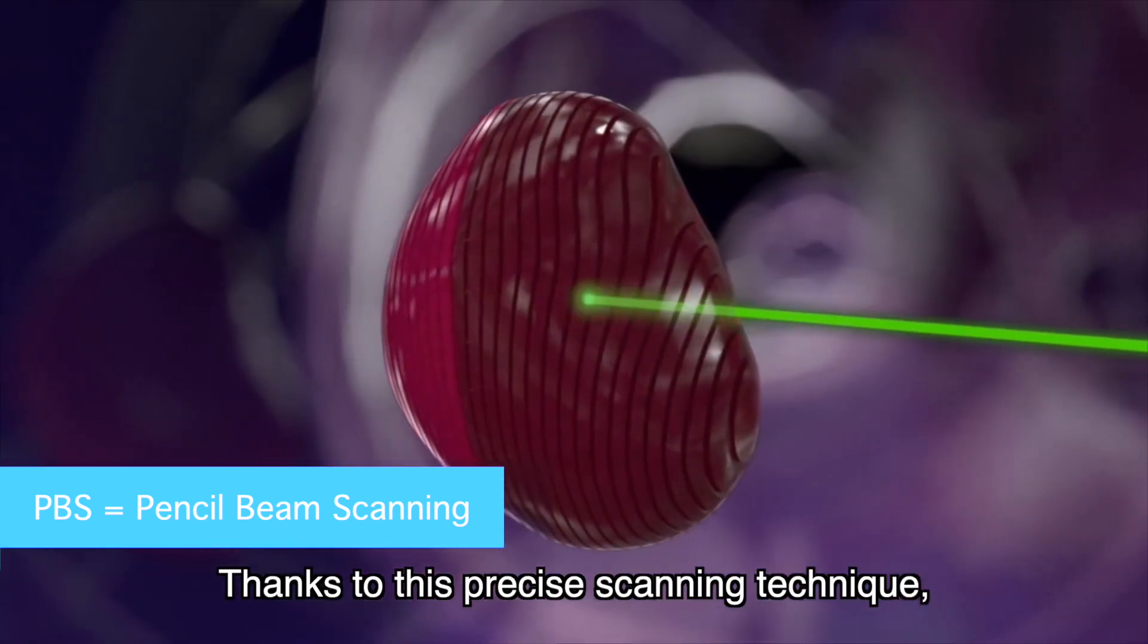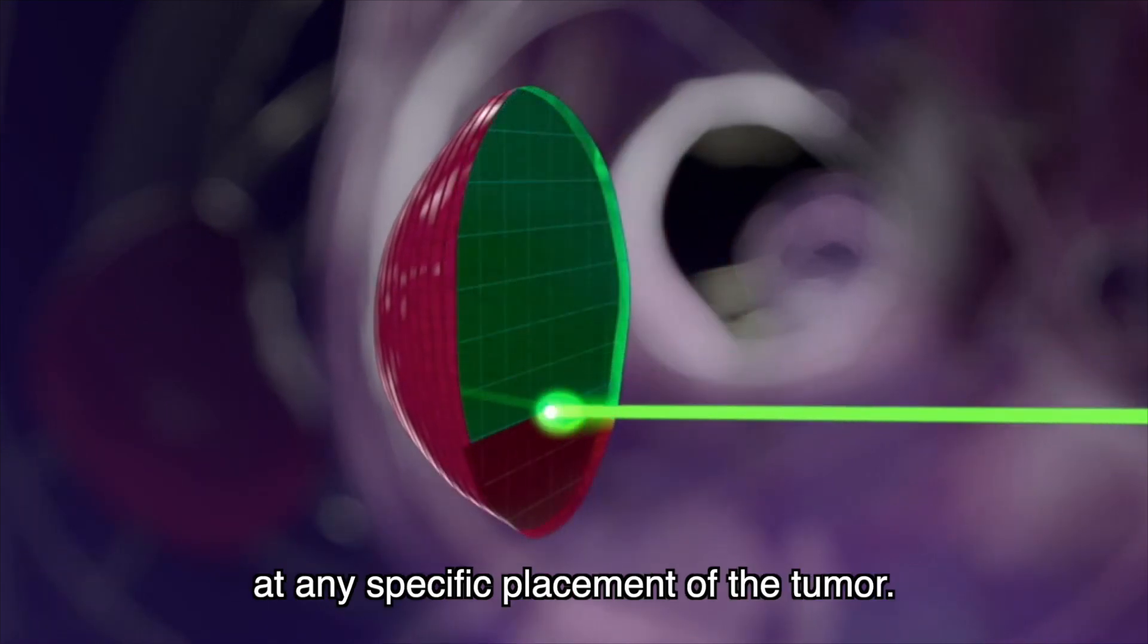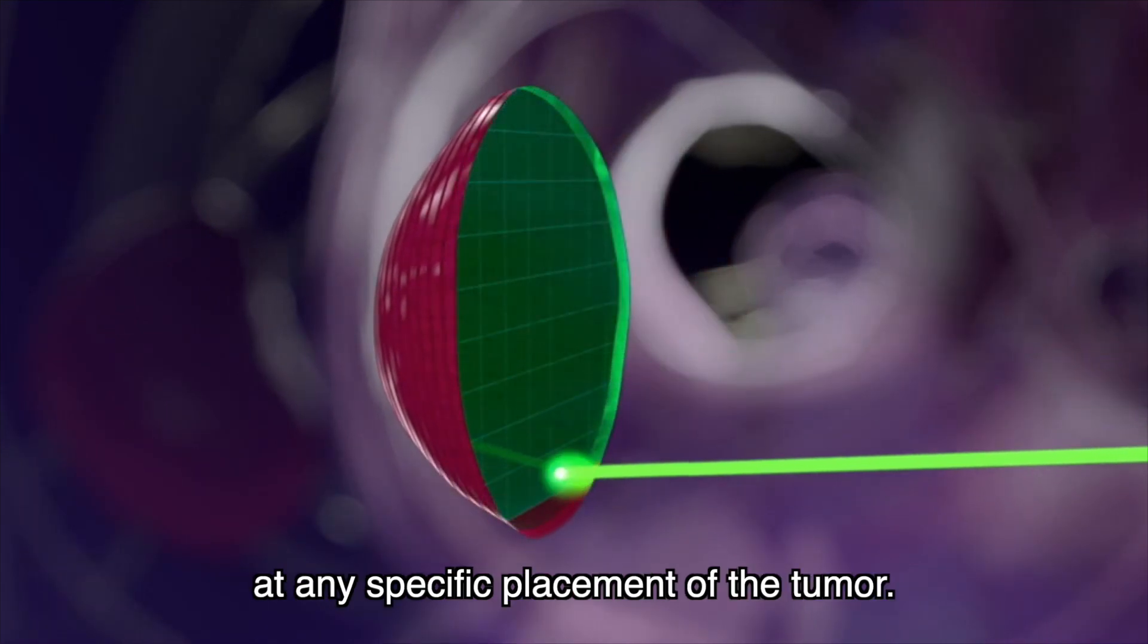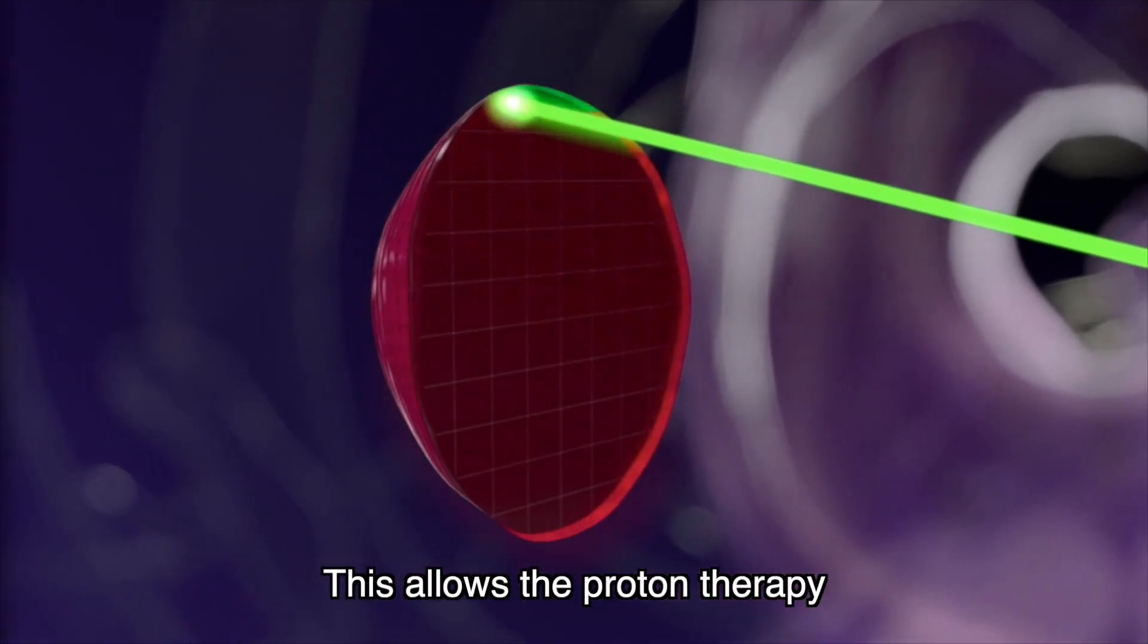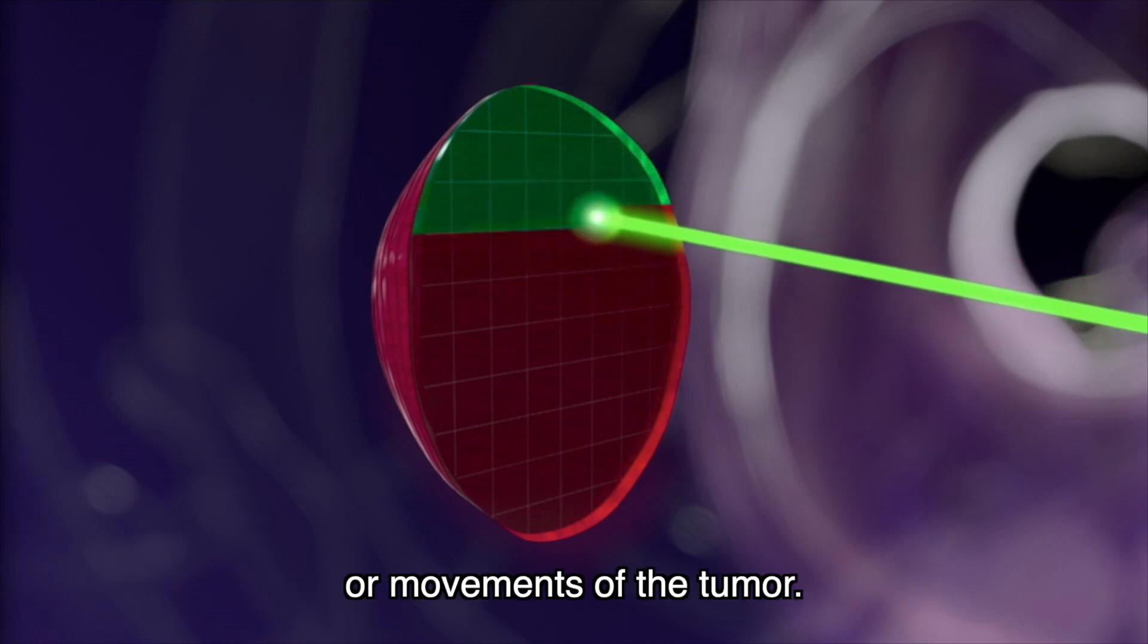Thanks to this precise scanning technique, doctors are able to adjust the proton dose at any specific placement of the tumor. This allows the proton therapy to adapt to highly complex shapes or movements of the tumor.